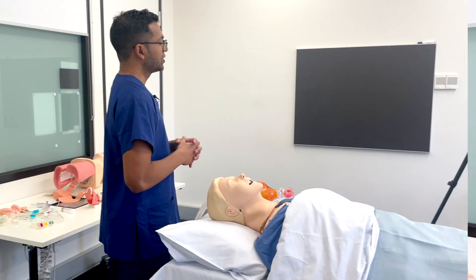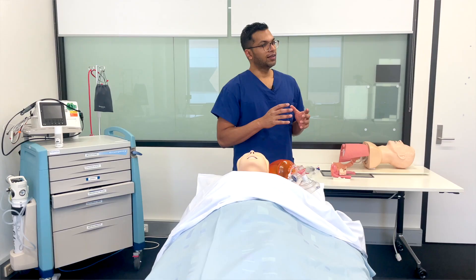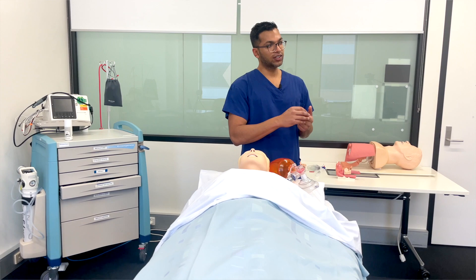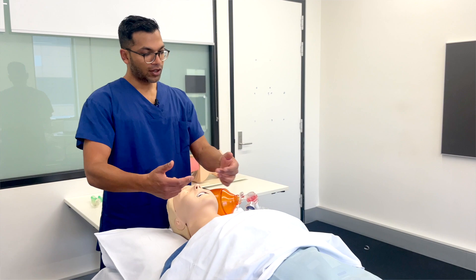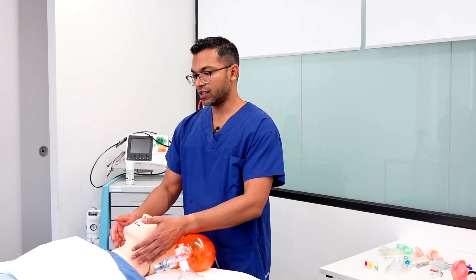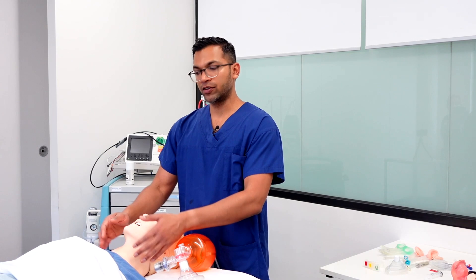The resources I reference are the Difficult Airway Society and the Vortex approach — I'll put links in the notes below. The aim of all these techniques — whether it's LMA ventilation, intubation, or bag mask ventilation — is that you may have a patient who's not ventilating or oxygenating appropriately, and so you need to create flow of air and oxygen through the mouth down through the pharyngeal and oropharyngeal structures into the trachea.